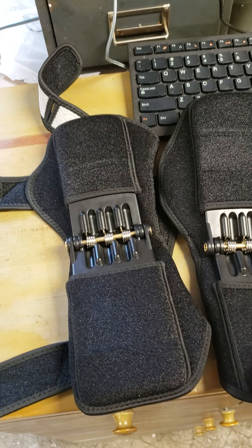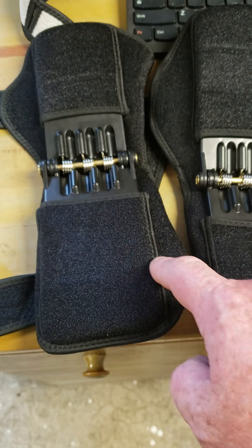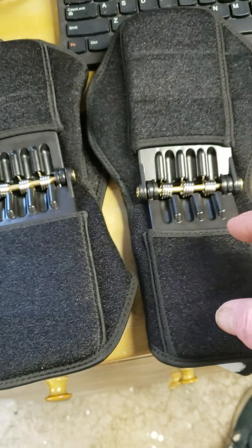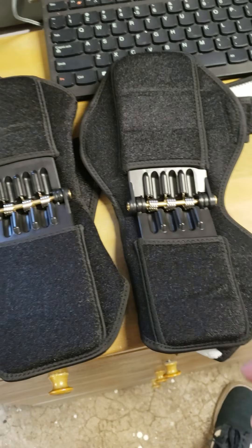Okay, so when you're watching the Uplift commercial, they have like the little badges right here that look neat. And they say 'knee,' 'power knee,' and all that on them. It's usually on both ends when I was watching them.